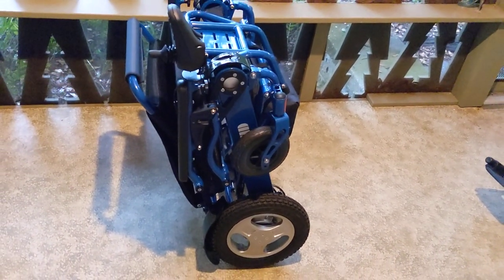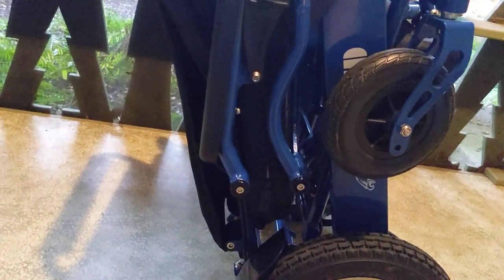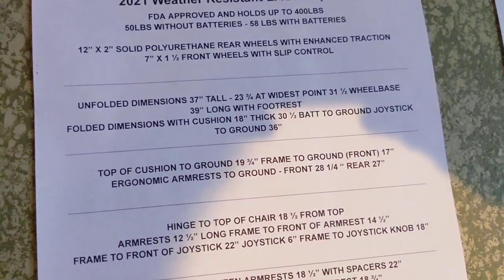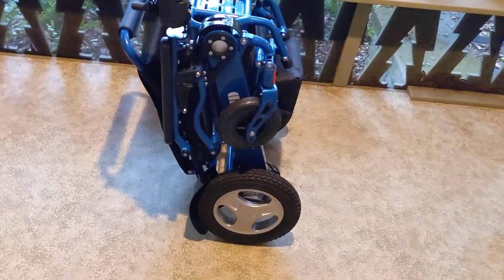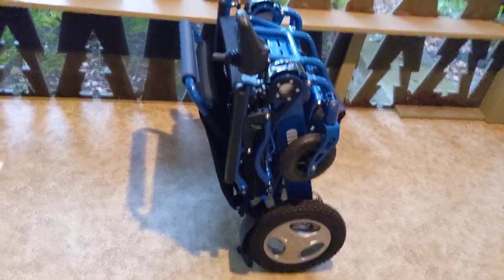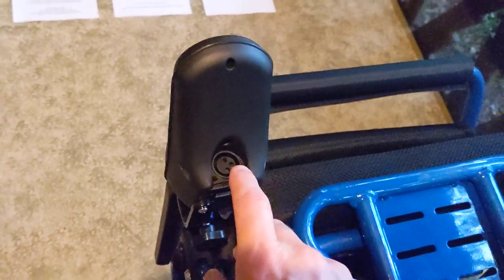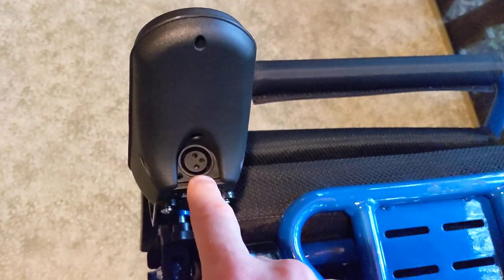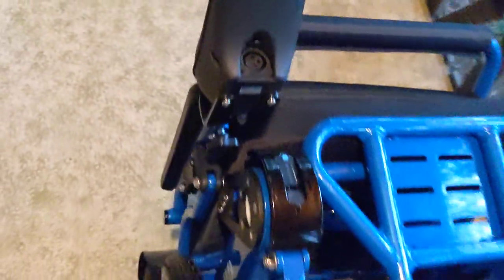The Eagle, as you can see right here with the seat cushion, has a depth of 18 inches, and a height folded up — I'll check the sheet — I think it's 30 and a half inches, and that's going to be the top of the battery to the actual ground. Looking at the joystick to the ground, we have 36 inches of height. And before I take the chair out of the folded position, you have the ability to plug the charger in through the joystick, which charges both batteries.